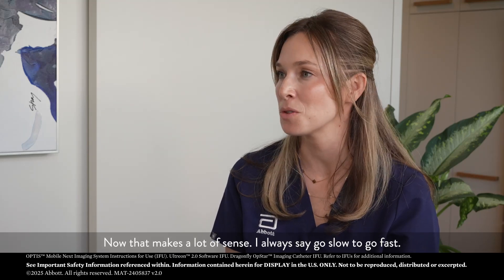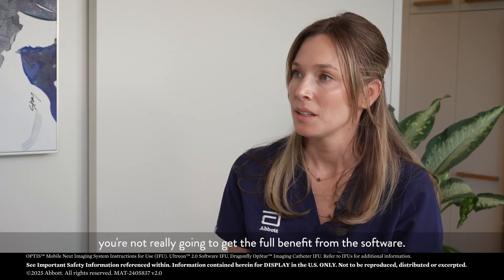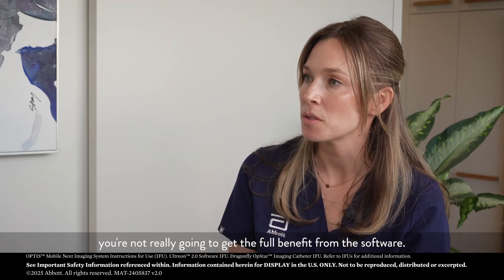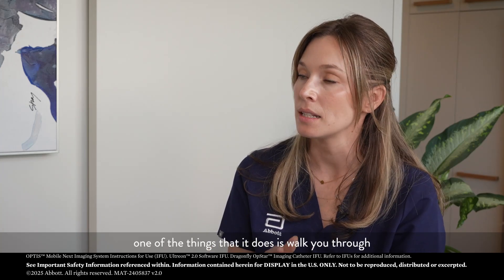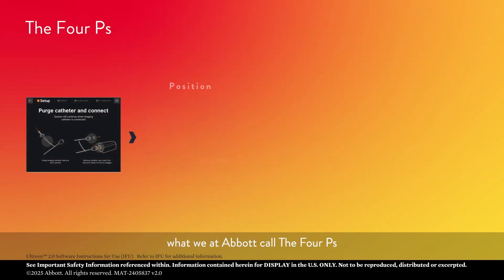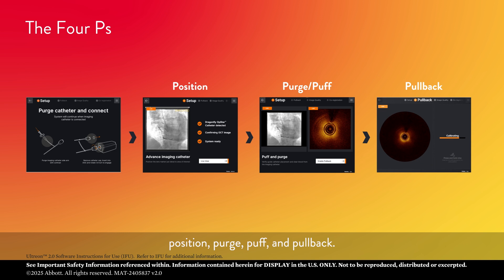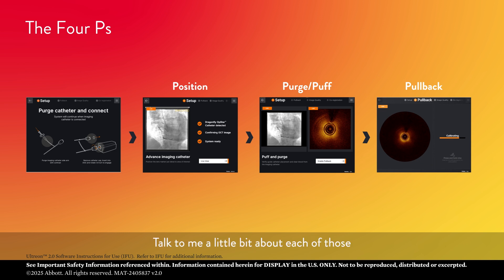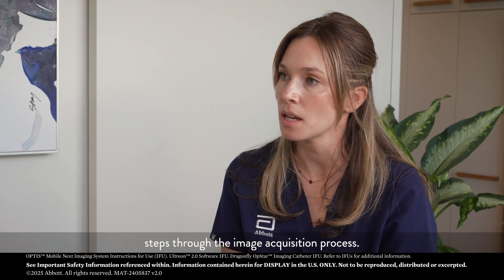That makes a lot of sense. I always say, go slow to go fast. You're itchy to use all of the features, but unless the foundation is right, you're not really going to get the full benefit from the software. That's right. So, talking about the software, one of the things it does is walk you through what we at Abbott call the four P's: position, purge, puff, and pullback.